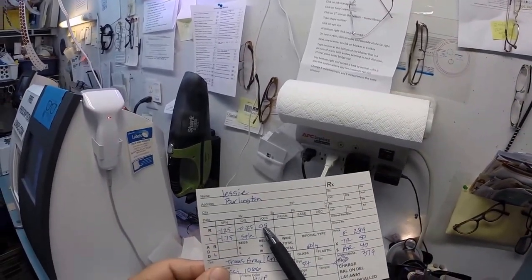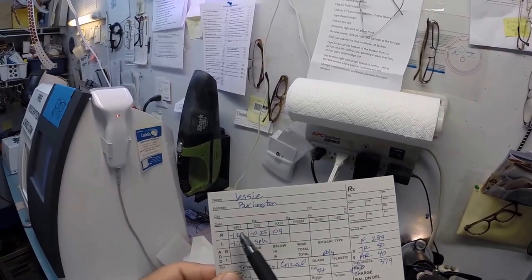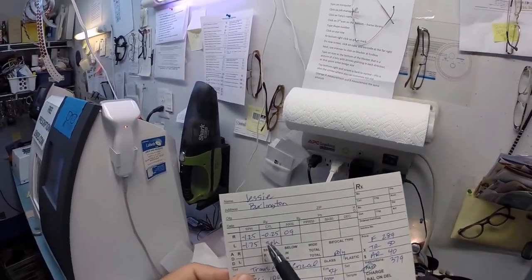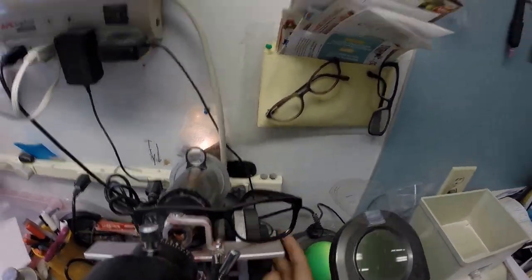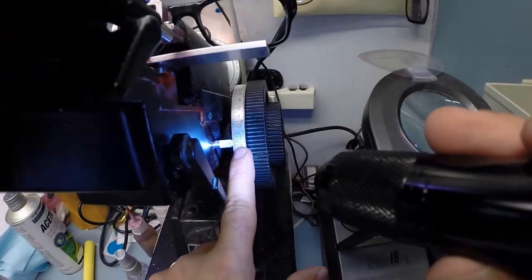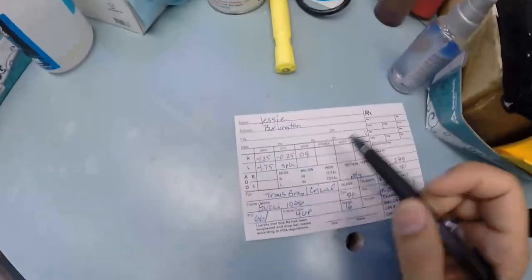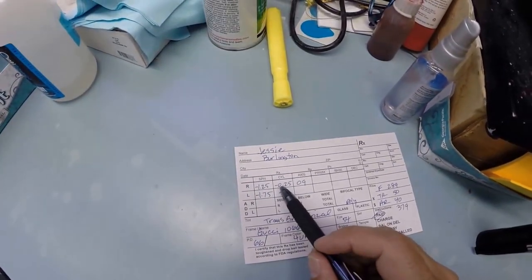Everyone freaks out when they hear the word astigmatism. It is not a disease. It is not an affliction. It fluctuates. It comes and goes. And it's no big deal. Think of it as the fine-tuned knob. And we're going to turn that knob to 9. A straight line is 0 to 180, with 90 being in the center. So we're going to turn that knob to about 9, just off the 180 meridian. Now this is an arbitrary number. It could be anywhere from 0 to 180. These first two numbers are real values to be concerned with. This last number isn't.